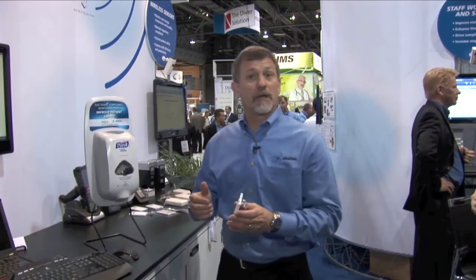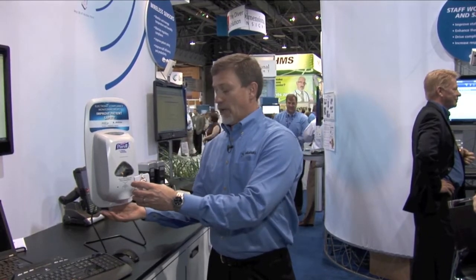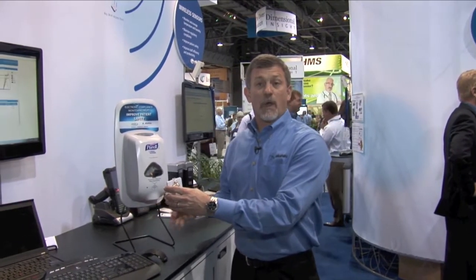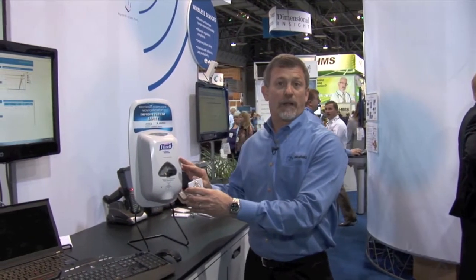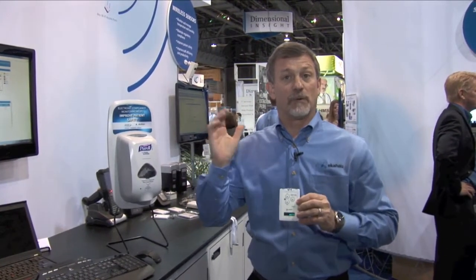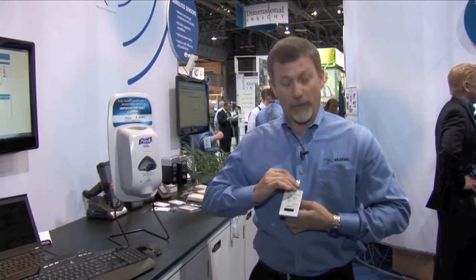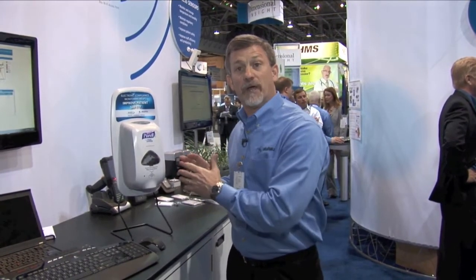The healthcare worker approaches the sanitizer and dispenses it. At this point an IR wavelength is sent to our badge tag, which is captured and sent through the wireless network to our hand hygiene compliance application. At that point it's actually capturing the time of the hand hygiene event.